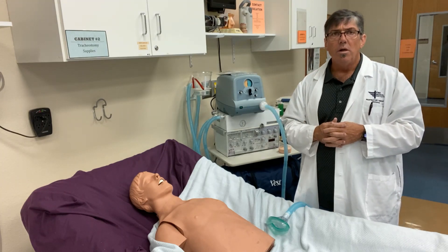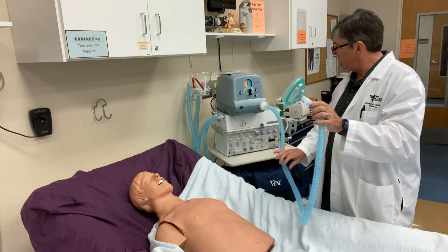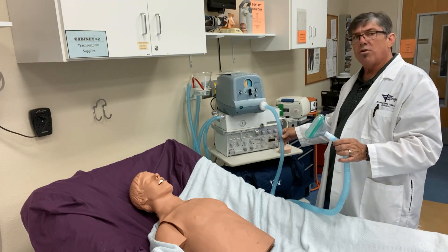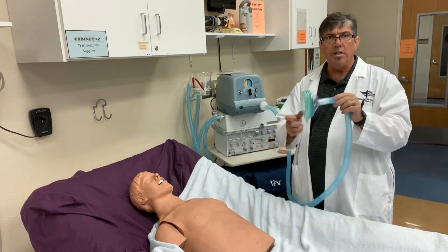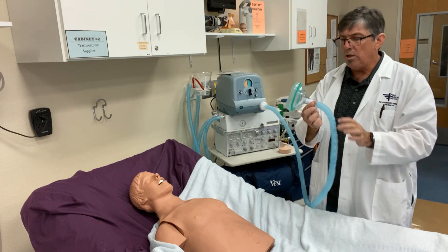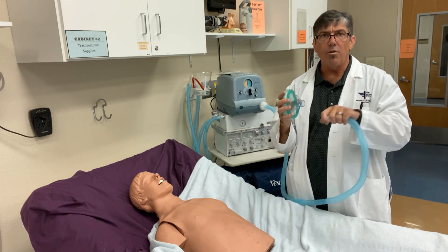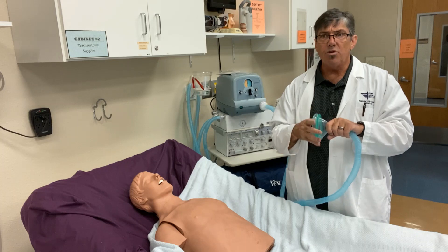This is an older model on our mannequin here today. Basically what we have is a circuit — very simple. We have a filter on the cough assist here to protect it from any cross contamination, a simple piece of corrugated tubing. In this case we can use a mask on our mannequin, but we can also connect this to a tracheostomy or an endotracheal tube with the proper 15 millimeter adapter that connects directly onto the airway.